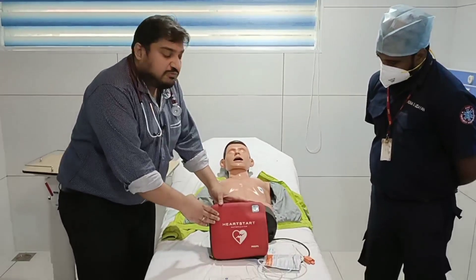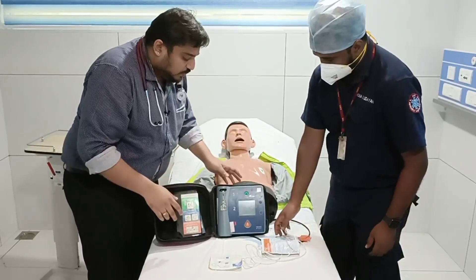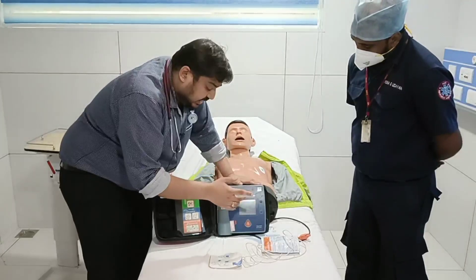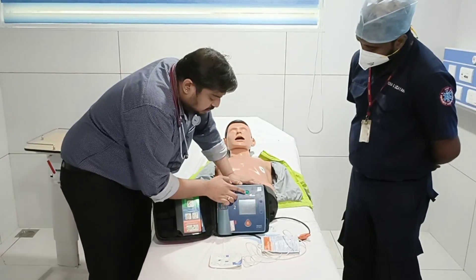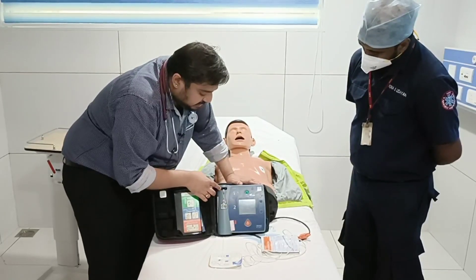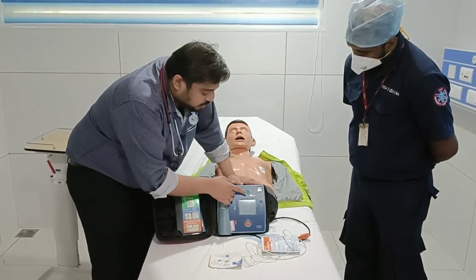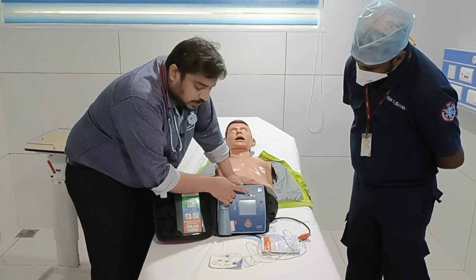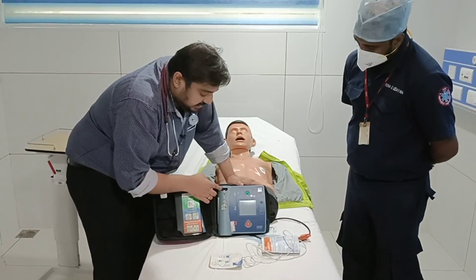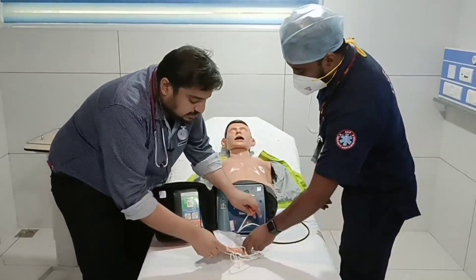This is an AED device as I have shown here. Once you open it, you have a screen. The standard format for all AEDs includes: a screen, a switch on/off button, a button to deliver the shock, and an area where you need to pin the connector. These are the different parts of the AED.